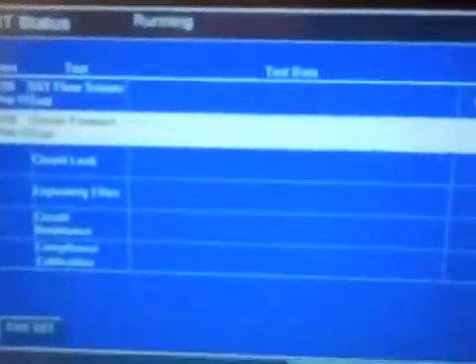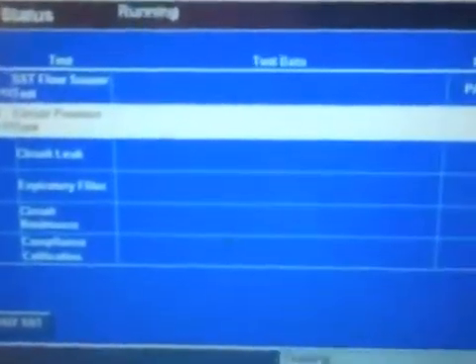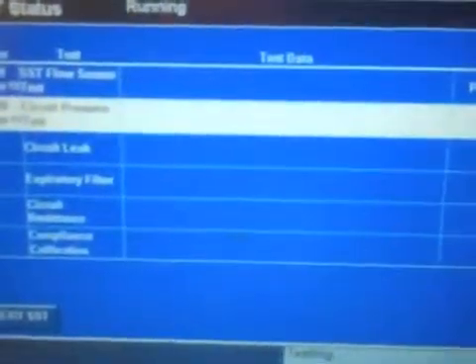It's giving me a pass as a result for my flow sensor. It's now doing my circuit pressure test, circuit leak test. I want to be able to see that this is going to hold pressure. You want it between 75 and 90. This flag looks like it's around 83, so we should pass here.